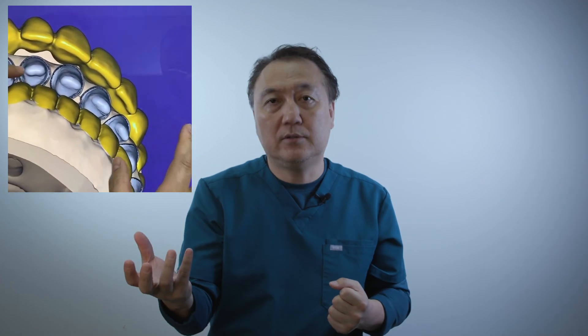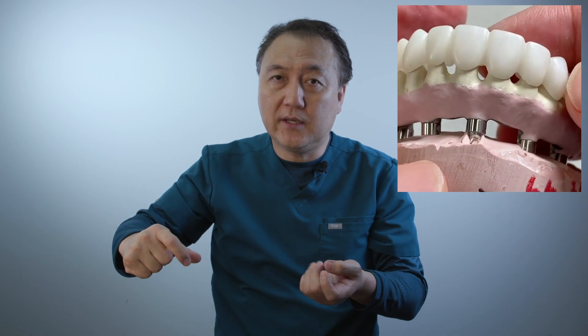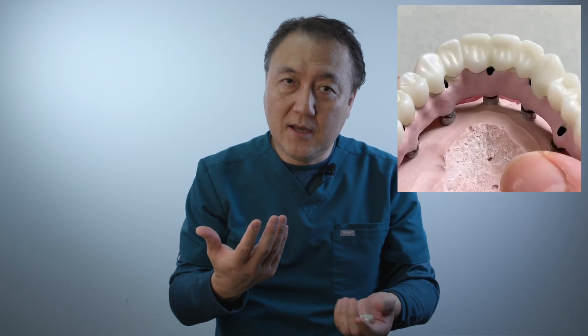We scan first, then make sure of the implant position and tooth size — AP spread, pontic design, and occlusion from the conversion denture. The other lab made the conversion denture, so I made a fully integrated unit to get all the splints together, because doctors and patients want a stronger bite.